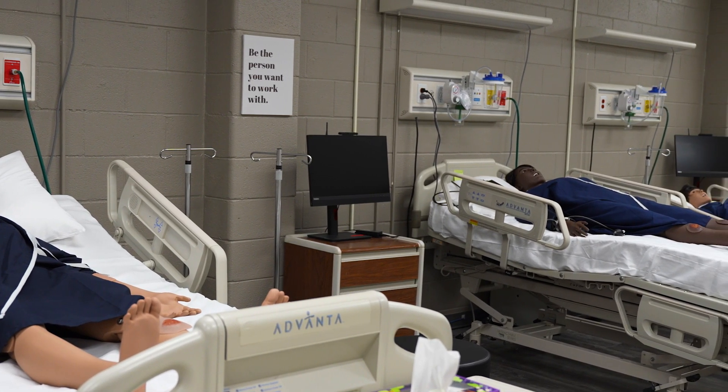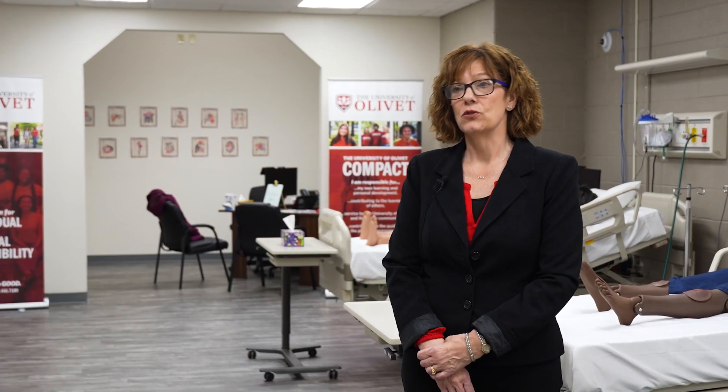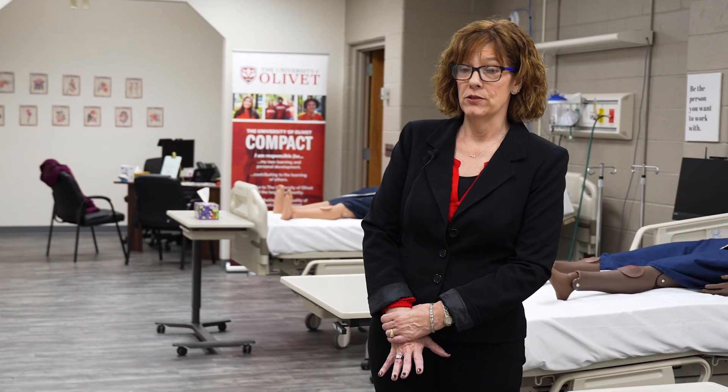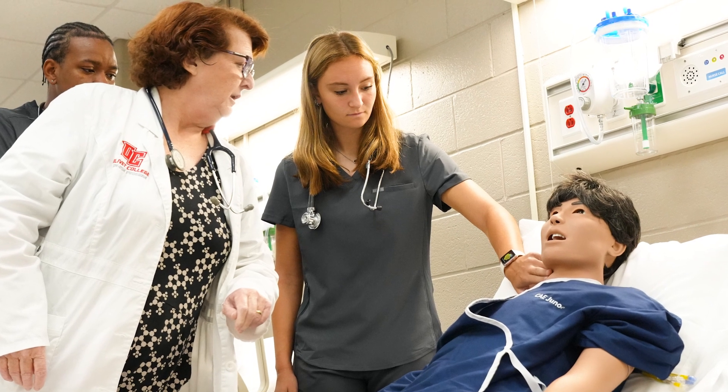I'd like to share the University of Olivet simulation lab with you. The importance of simulation education is that students learn in numerous different ways — as all humans do, by hearing things, by seeing things, and by touching things. Using the high-fidelity and medium-fidelity mannequins that we have helps students practice through situations before they occur in real life.